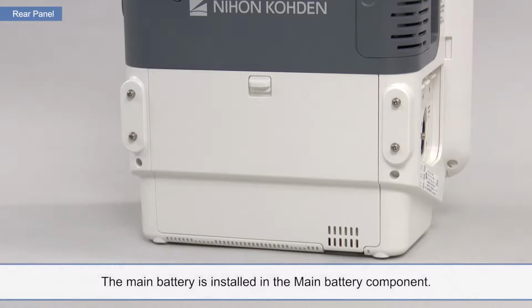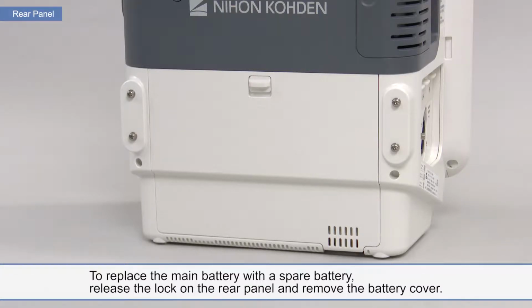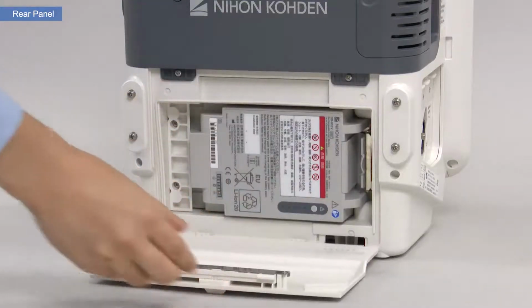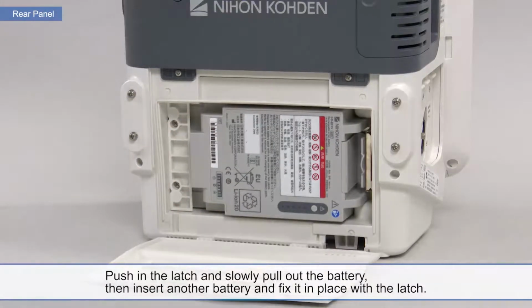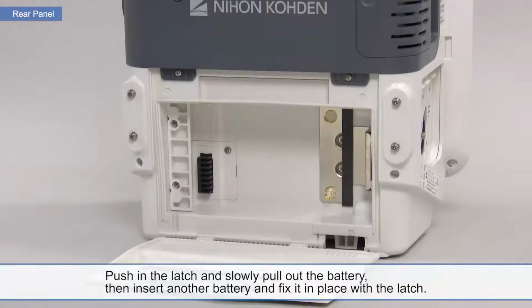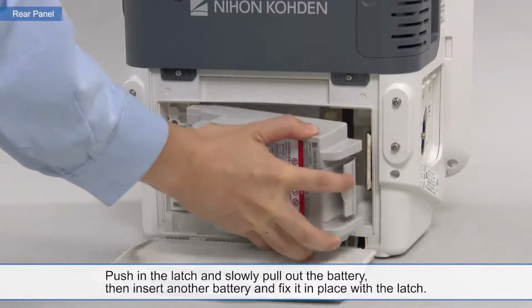The main battery is installed in the main battery component. To replace the main battery with a spare battery, release the lock on the rear panel and remove the battery cover. Push in the latch and slowly pull out the battery. Then insert another battery and fix it in place with the latch.